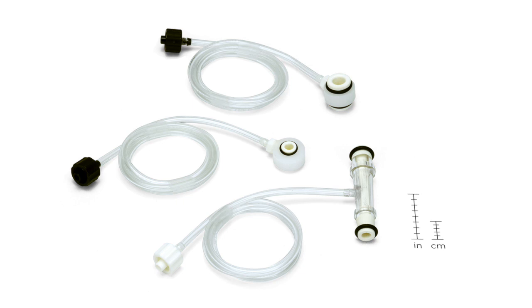Both VPR and O-Cuffs are comprised of four main parts. The plastic cuff body is connected to the tubing by either a lure connector or a sealed barb fitting. The latex bladder is stretched inside the cuff body and held in place by O-rings or caps.